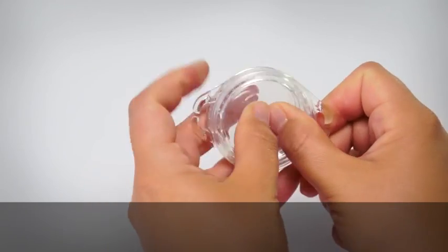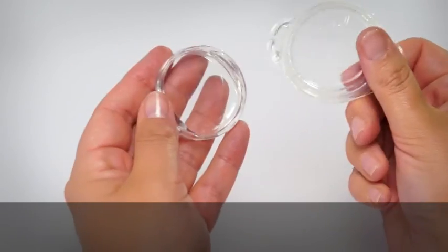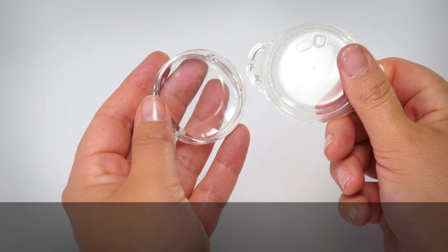If the seal is okay, place AquaPlus in your storage case or the activity kit waterproof case until you want to use it again.